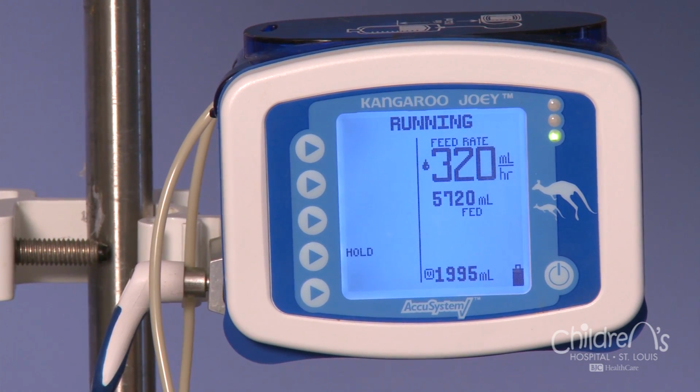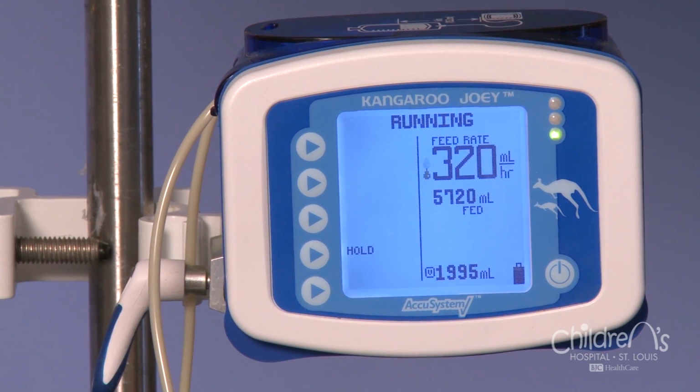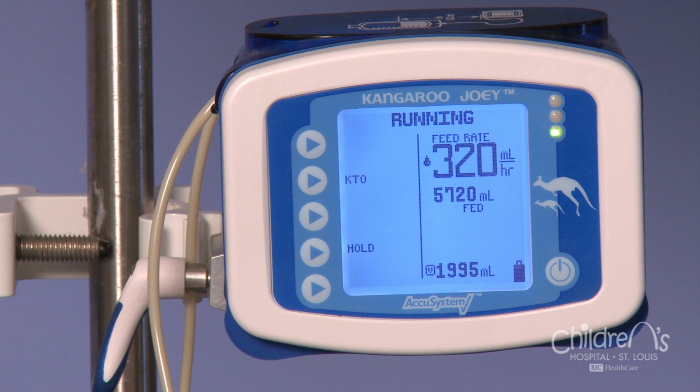Please note, depending on the type of pump that has been ordered for your child, it may look different than the pump in this video. Even so, it will operate the same way. Your home health company will go over your pump with you.